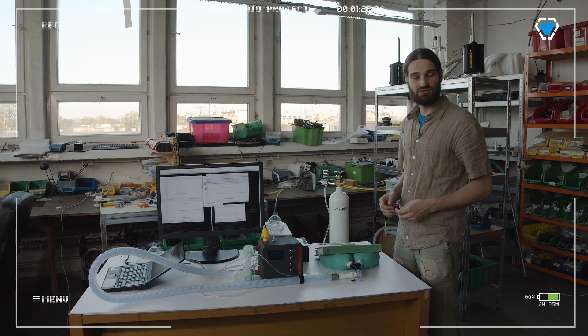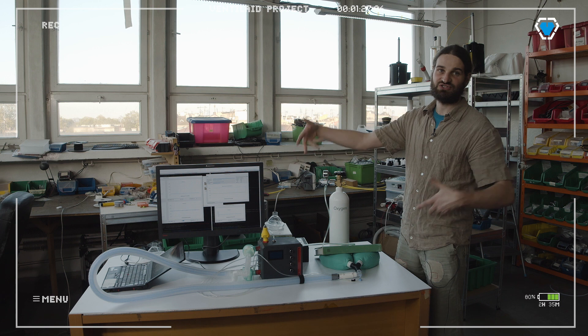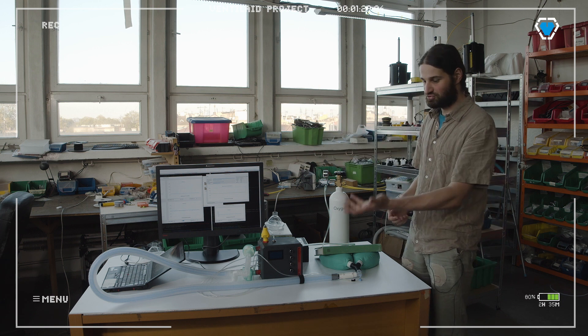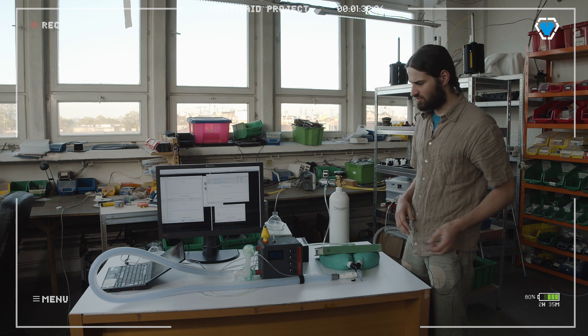There are various ways how you can do it with our device. What we put here is a computer screen so that you can see it large, but you could also take a smartphone or some other ways which we're going to describe in the paper later on.